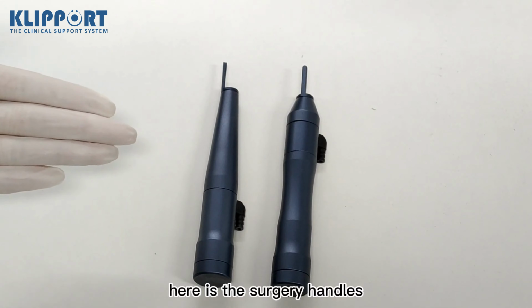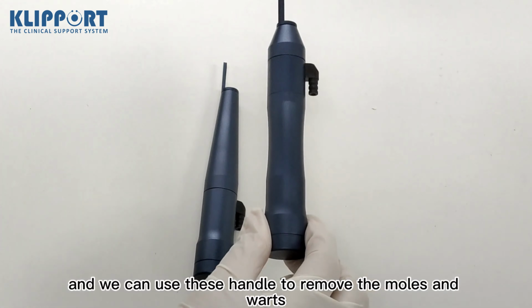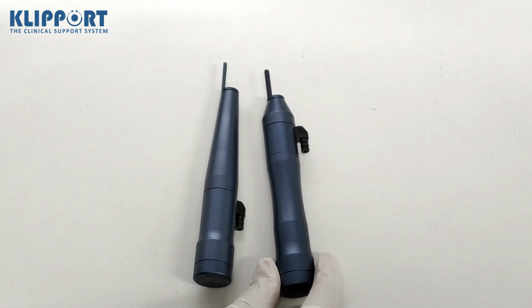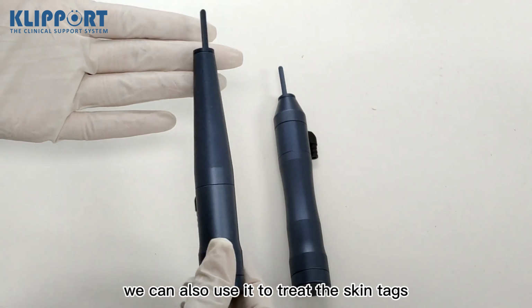Here is the surgery handle. We can use this handle to remove moles and warts. We can also use it to treat skin tags.